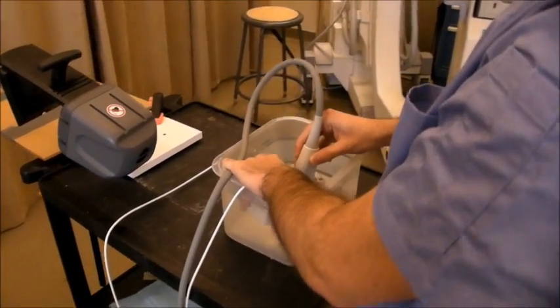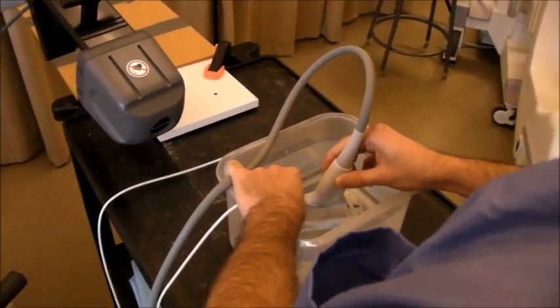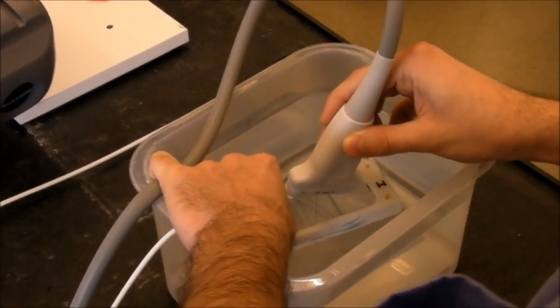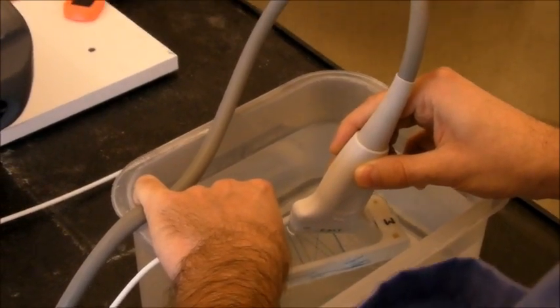I'm scanning the Phantom. I rotate it a bit.